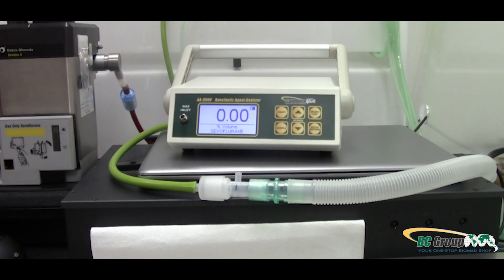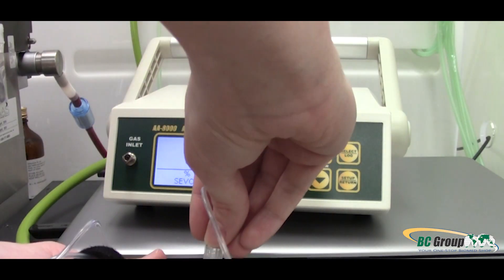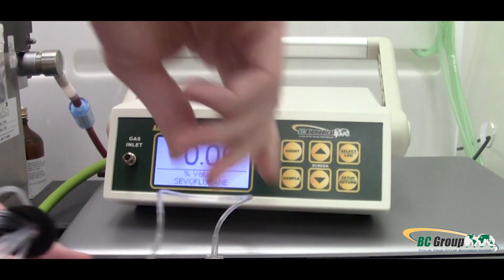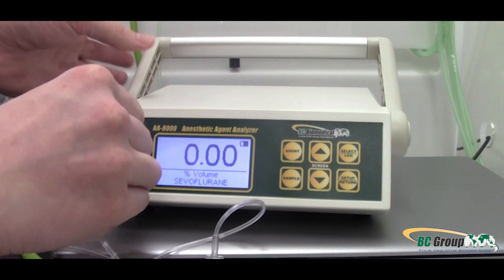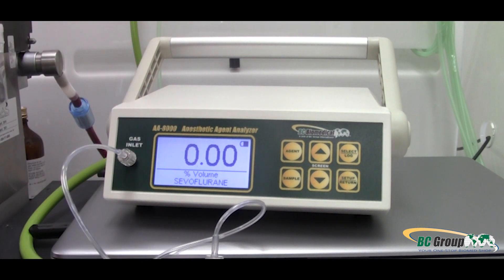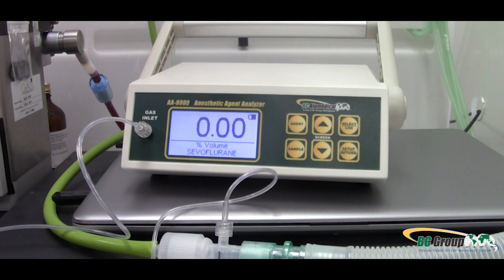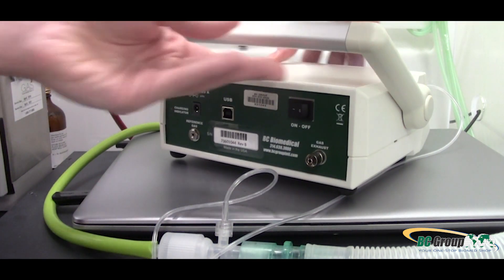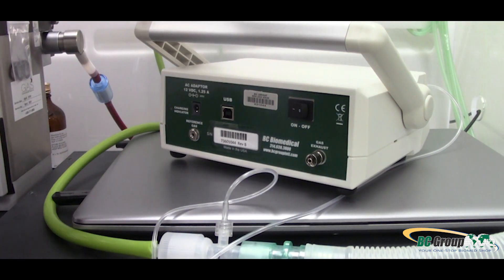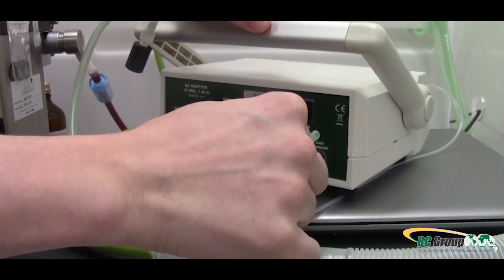Insert the ventilation adapter into the common gas outlet on the anesthesia machine. Connect one end of the sample line to the AA8000 gas inlet connection and the other end to the ventilation adapter. Connect the scavenger tubing to the gas exhaust port on the AA8000 and the other end to the waste anesthetic gas disposal system. Also use proper scavenging for the gas passing through the ventilation adapter.